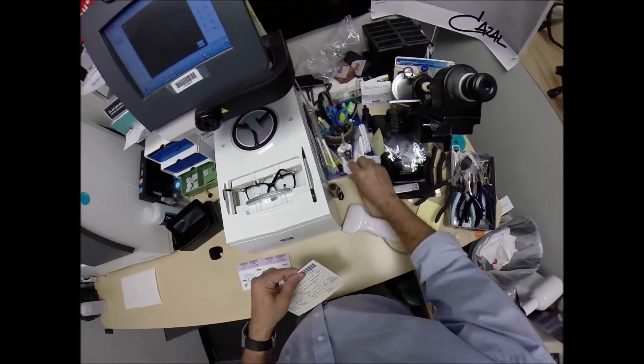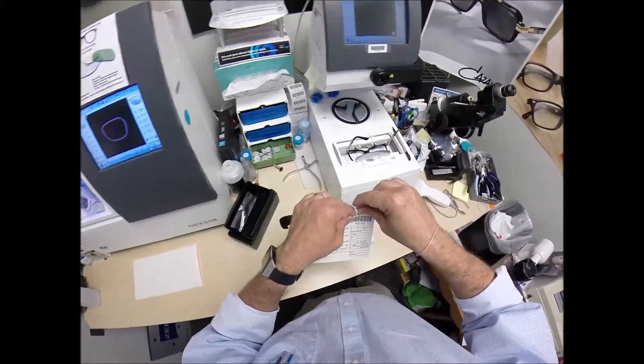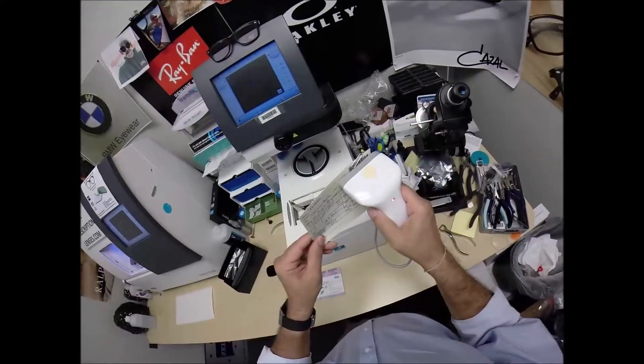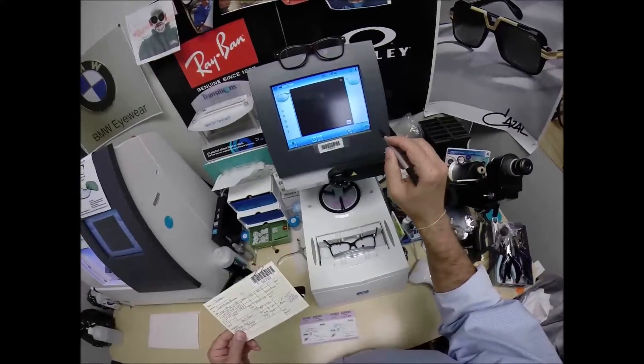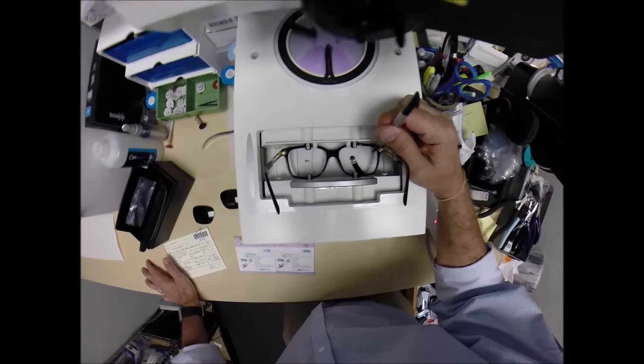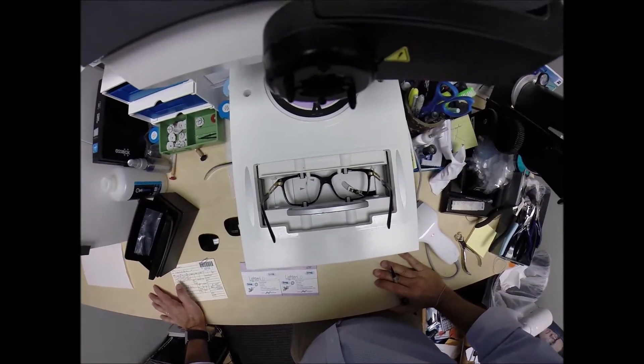So that years from now, should you ever need new lenses, I can mail them right to your home, and you can pop them in when you see how easy it is to do. I'm going to hit the start button. The little stylus is going to pop up, go around, trace the inside bevel of the right side of the frame before doing the same thing on the left.